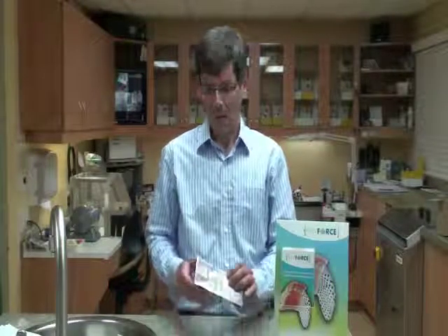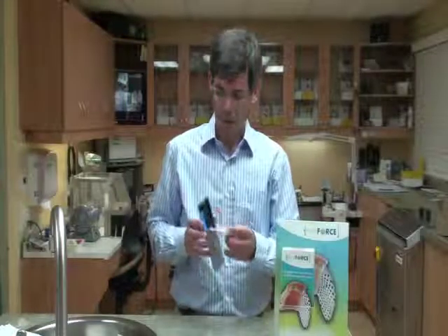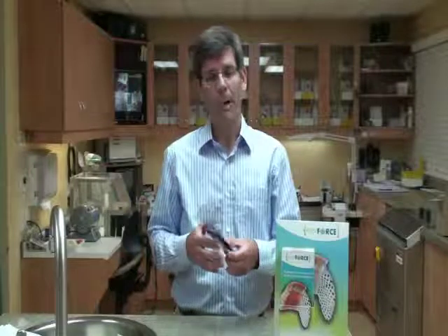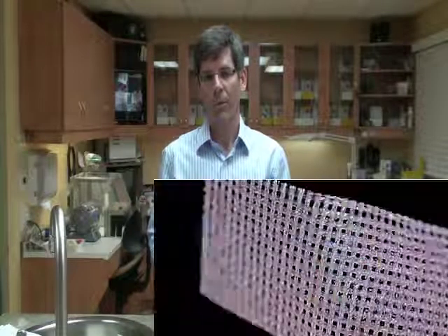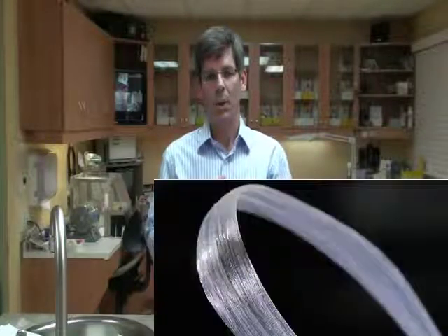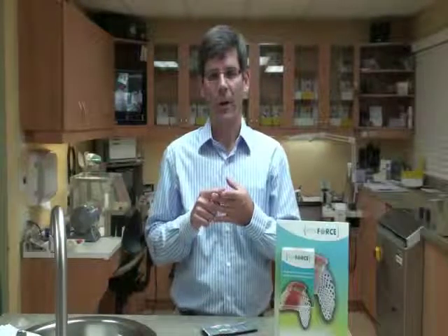It is easy to use, fast and very strong. All of the Fiber Force stranded materials come in packages like this of two 15cm pieces. There are four formats of material overall with Fiber Force: a mesh, a 2mm braid, a 1mm braid, and a UD or unidirectional fiber.